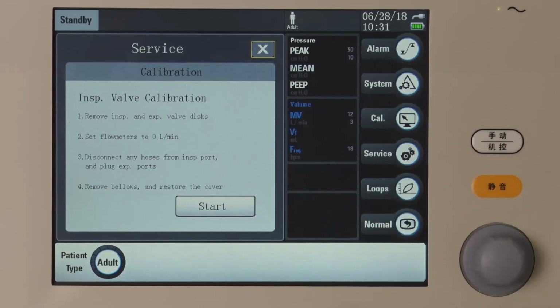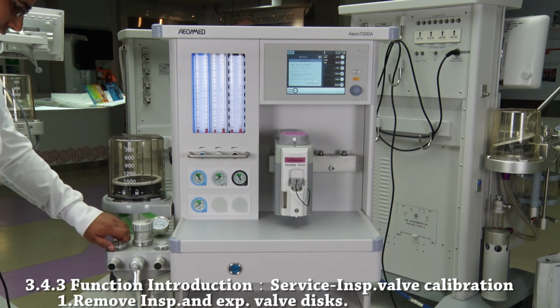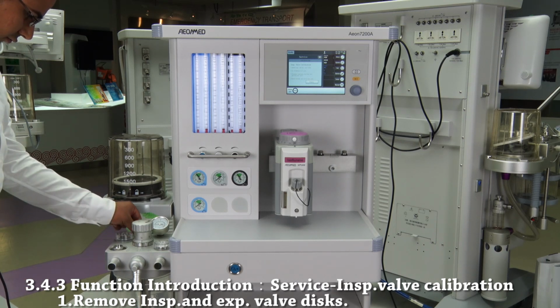Press here for inspiratory valve calibration. Step 1. Remove inspiratory and expiratory valve discs.